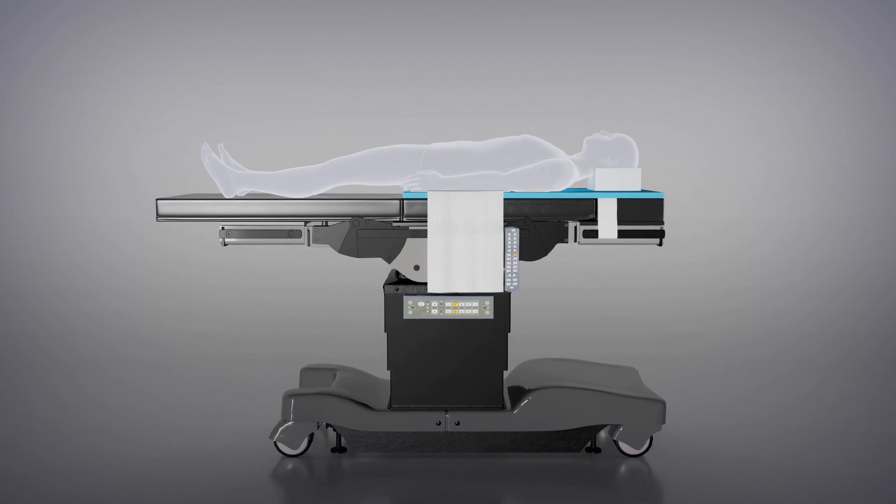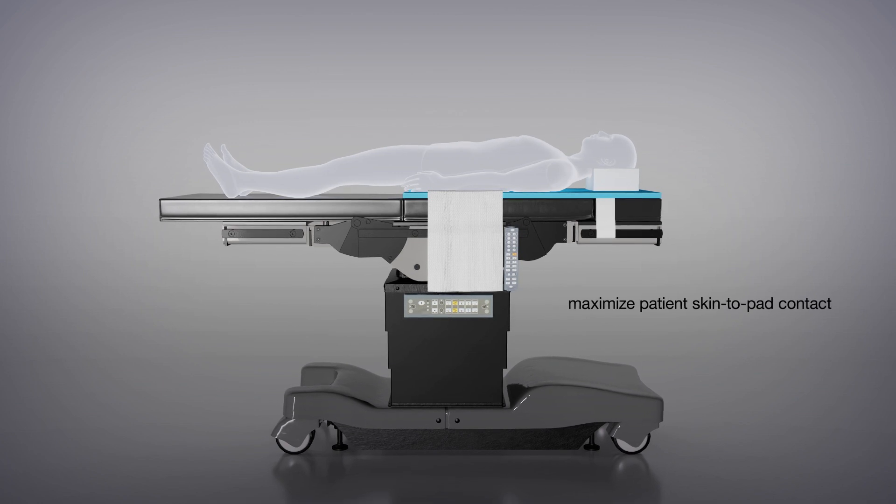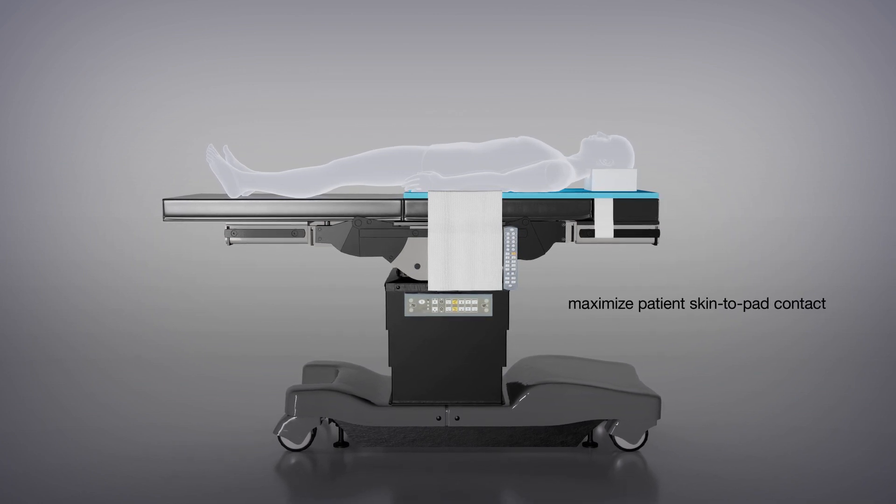To maximize the efficacy of the PrimePad, ensure that maximum patient skin-to-pad contact with the PrimePad is achieved.